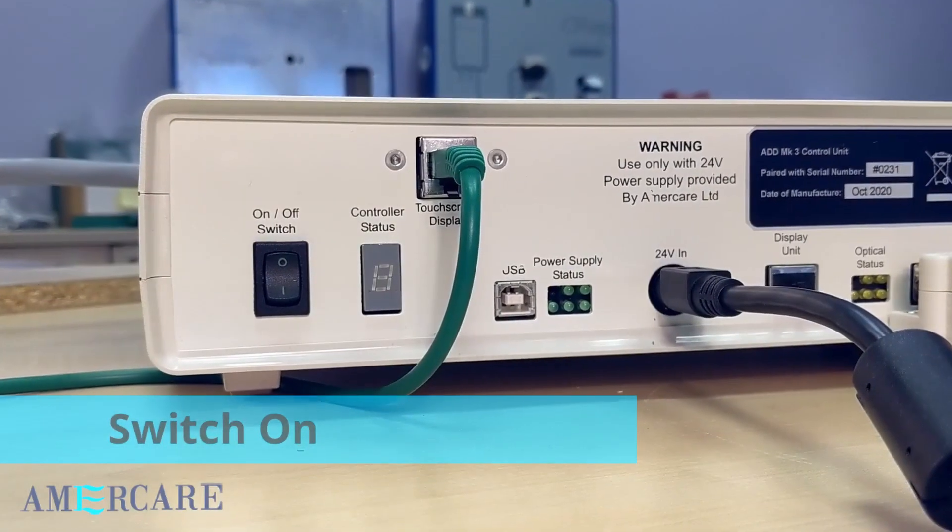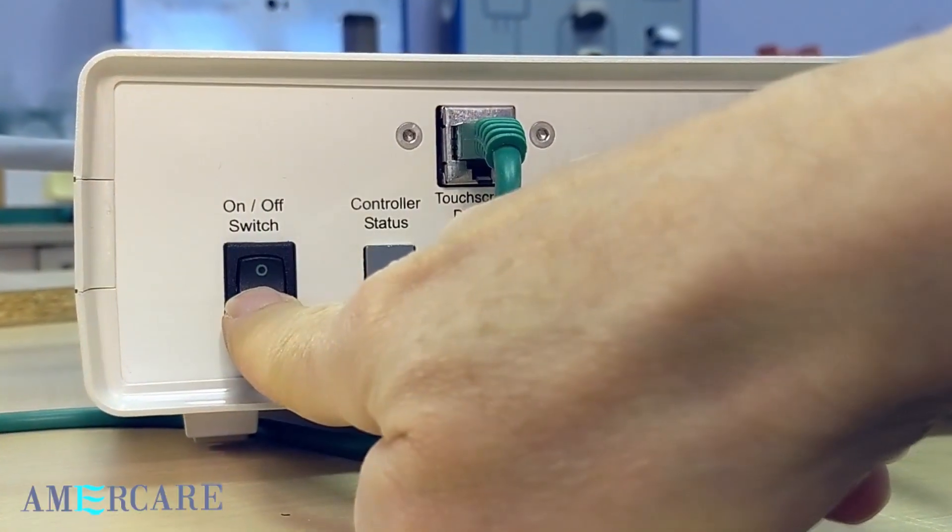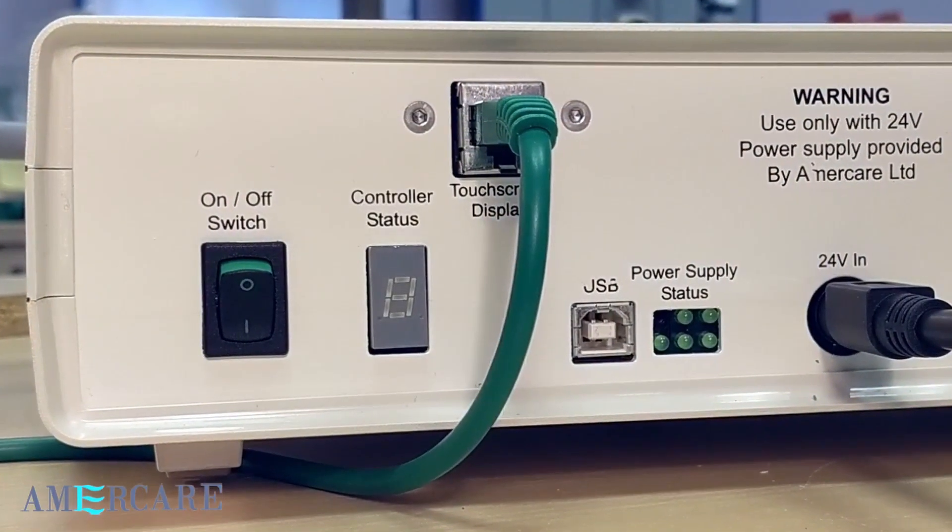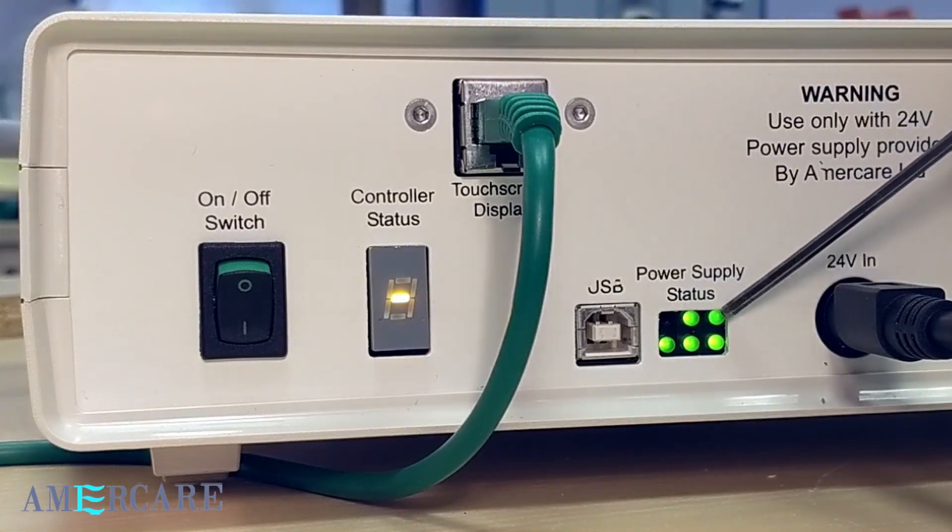We can now power on the unit. Switch the on-off switch down to the on position. After a pause, you will hear the cooling fan start. The five green power supply status LEDs will illuminate.